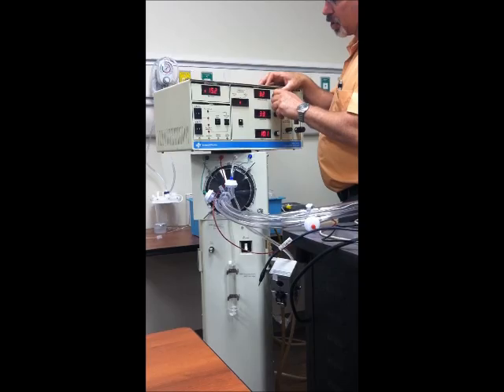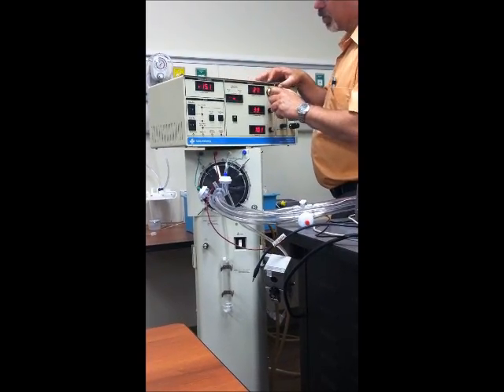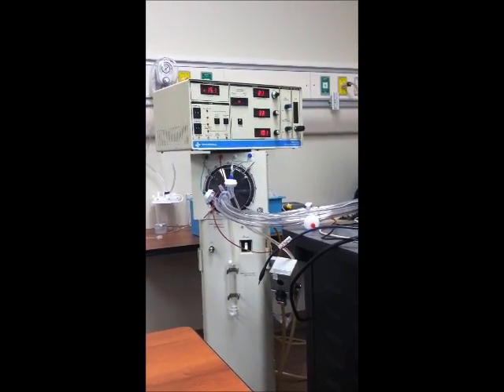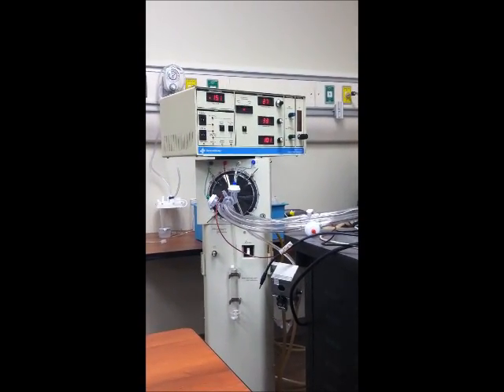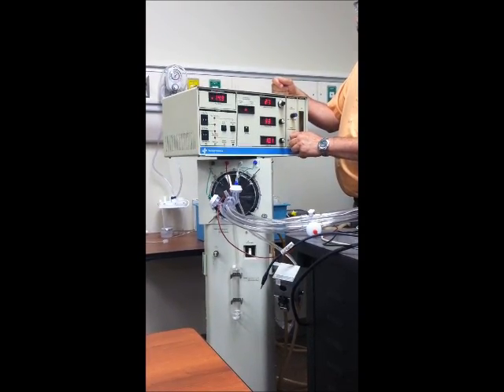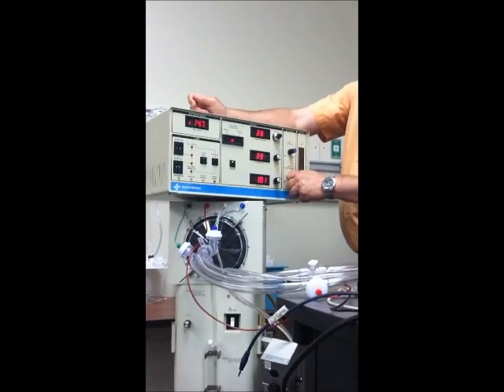I just really can't show you how this knob works unless you're right with me here. So I'll have to just do it with each of you as you're playing with the ventilator lab on Friday. And then a mean airway pressure of 14. So I'm going to turn my green knob down, so I get about 14 on my mean airway pressure.